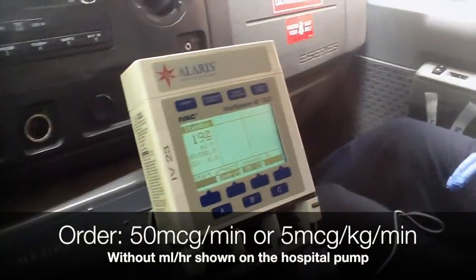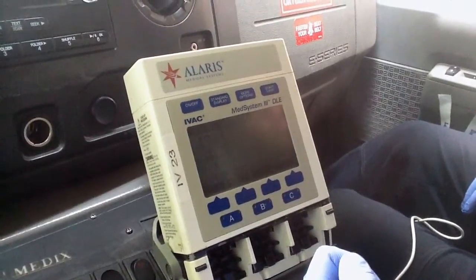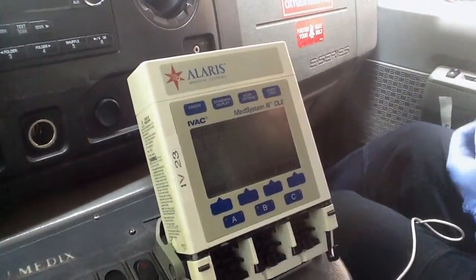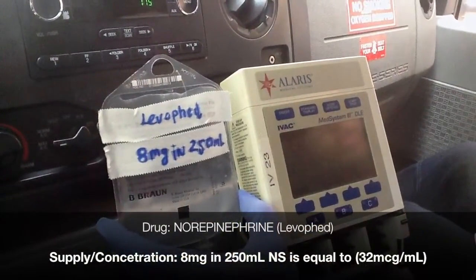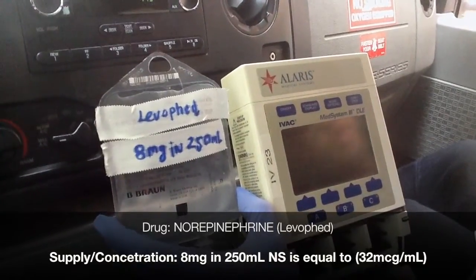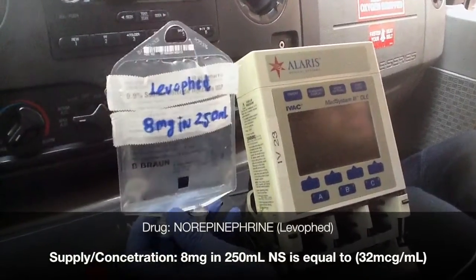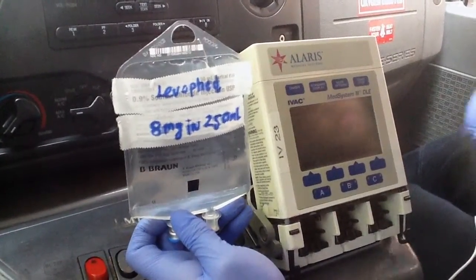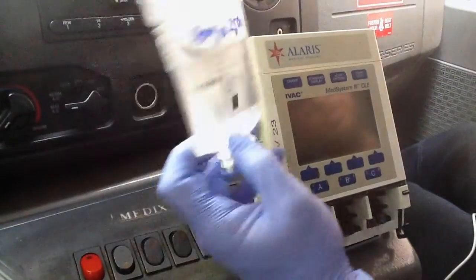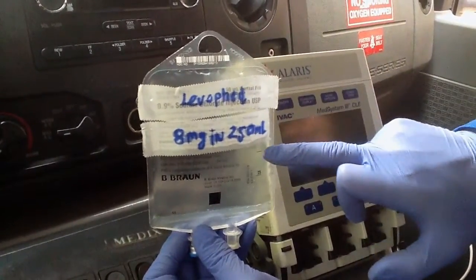The first thing you'll do is arrive at the facility and check the medicine. We're going to start with the most critical medicine — levophed, or norepinephrine. It's a potent alpha-1 constrictor, keeping the patient's blood pressure and hemodynamics in check. The concentration is 8 milligrams in 250 mLs of normal saline. If the bag has been running, turn it to the side and read the demarcations to see how much fluid remains — maybe 25 or 50 mLs.